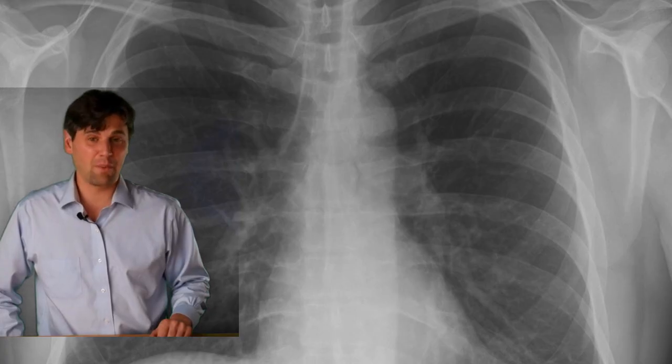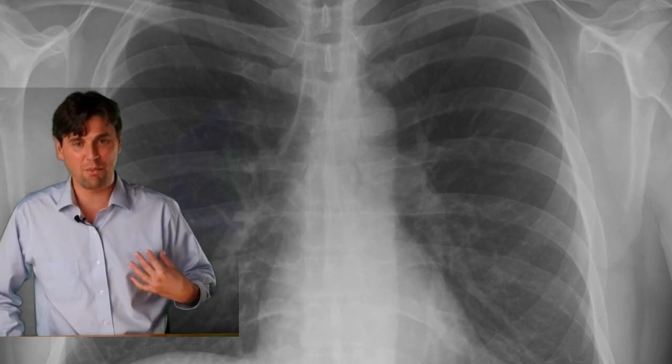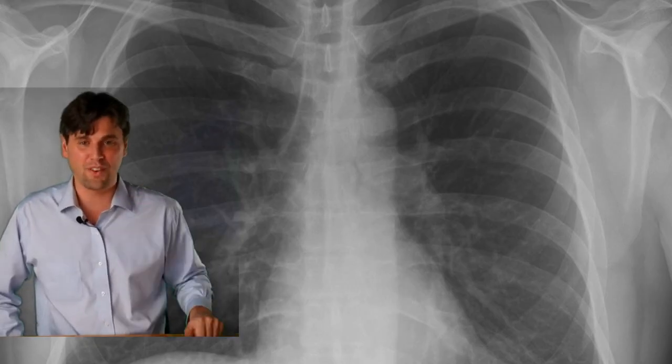We have a video on x-ray penetration to make sure you really understand the idea about the x-rays making it through the human body. And that informs our 15% rule.